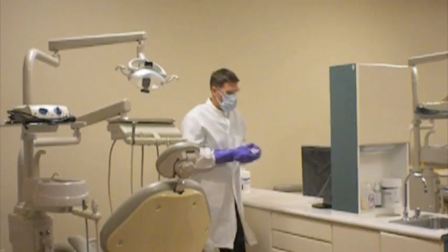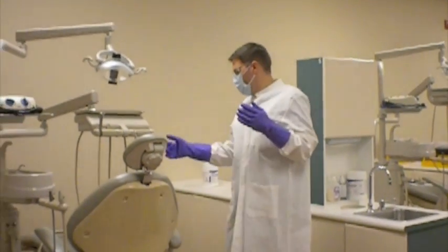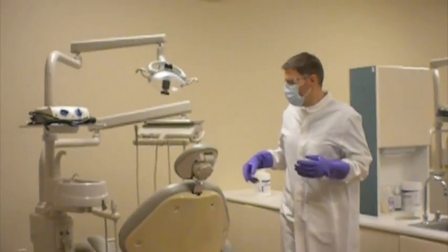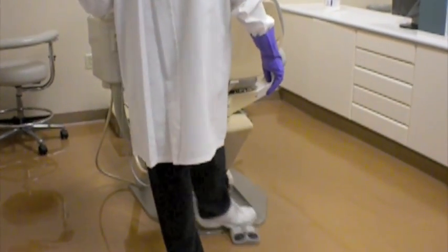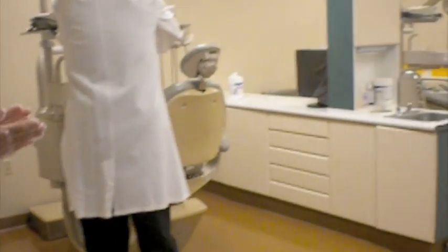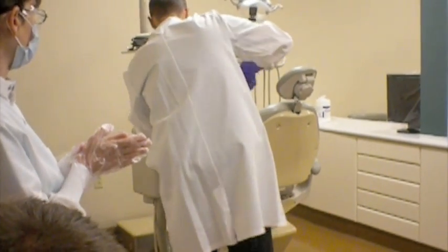So the top, the sides, the bottom, he's discarding the wipe, and then he's going to move to turning on the unit, the master switch, which is on the side of the bracket tray here. He's going to pull the foot pedal off the base of the chair, and he's going to remove what we call the rheostat from the top of the chair along with the paper towel that it's sitting on. If he doesn't, they're in our way when we begin to disinfect that portion of the unit very shortly.